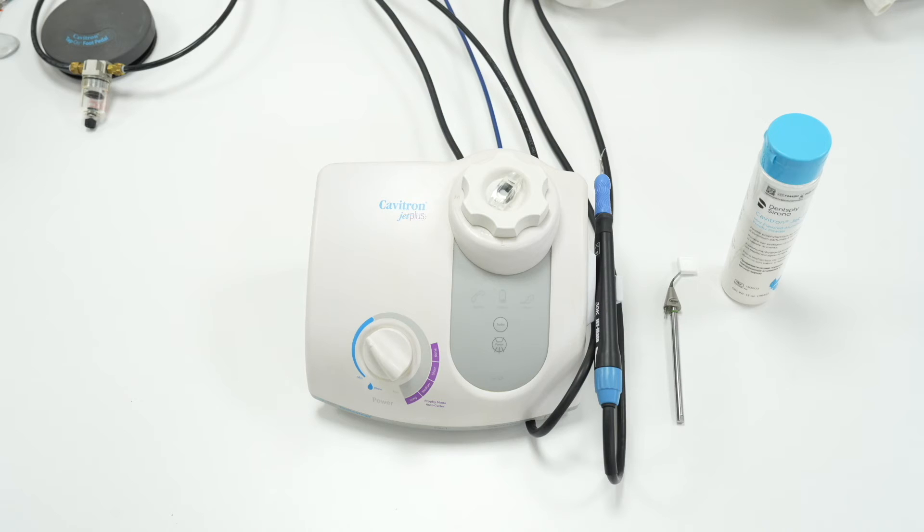Think of the profi mode like a jet wash machine. The water removes stain with the help of powder. However, if too much powder is coming through the system, it will just make a mess and get everywhere.